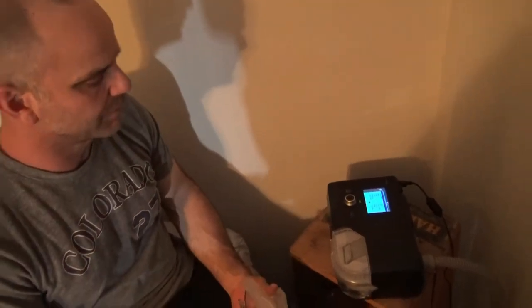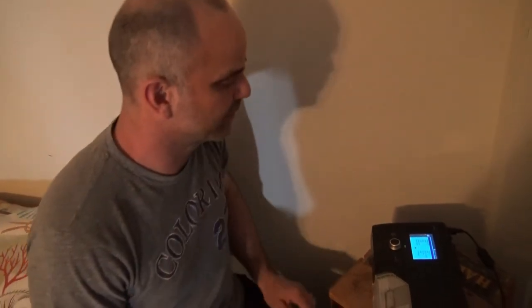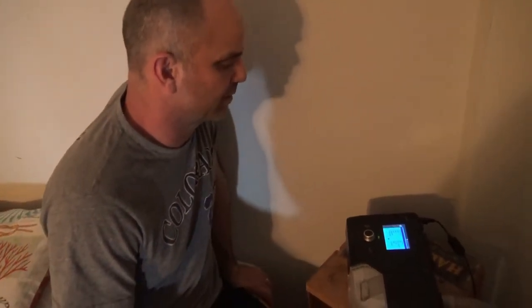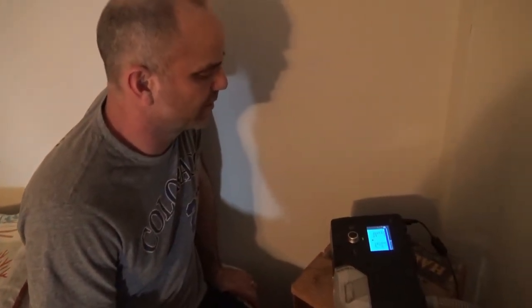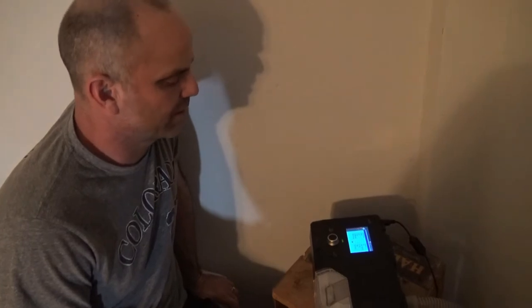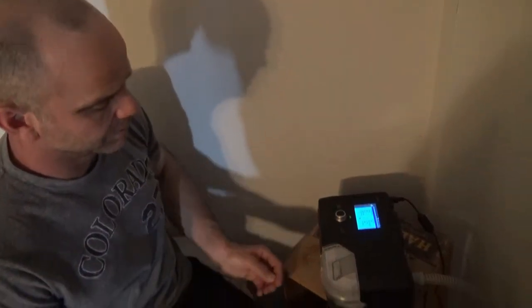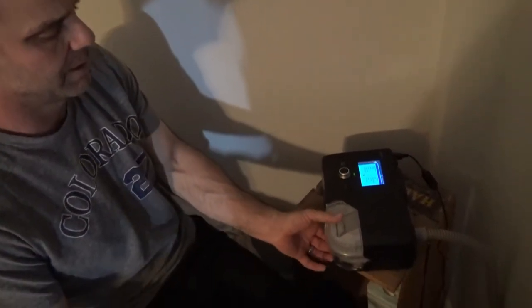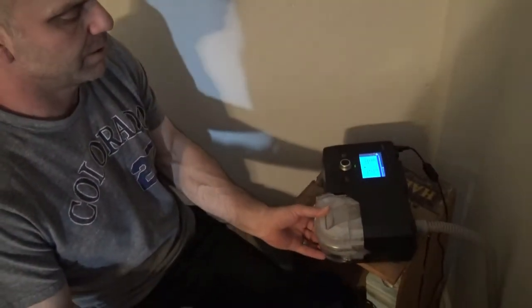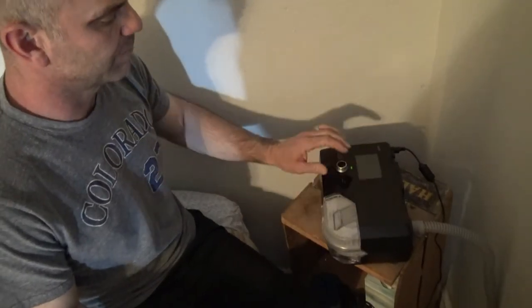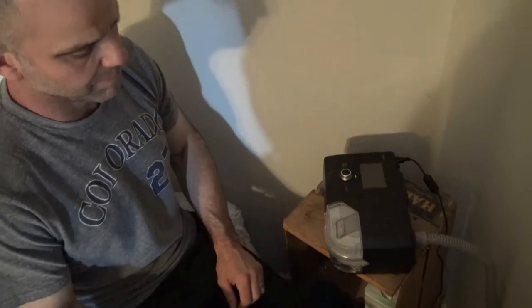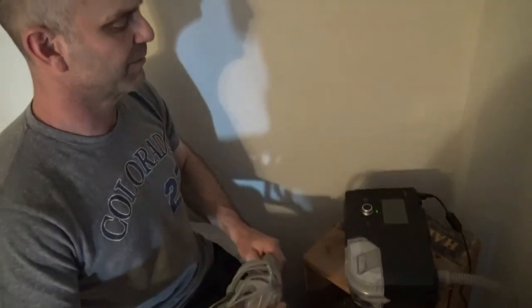As far as the main review, I can't tell absolutely any difference between this and my Philips Respironics DreamStation as far as quality of sleep or anything like that. I think it's a great CPAP machine. It's really easy to use with the water bin pulling out like that. I'll just give it my stamp of approval.